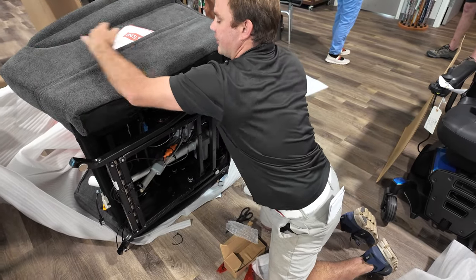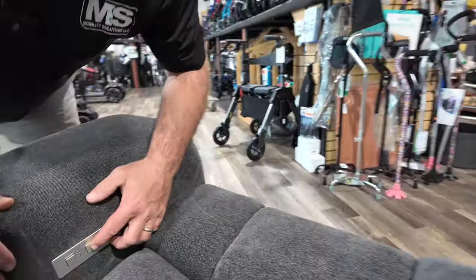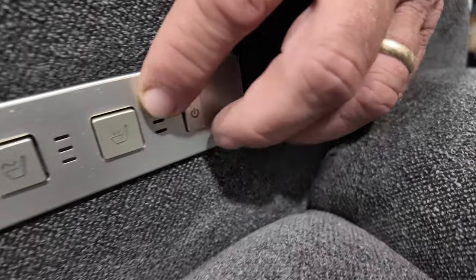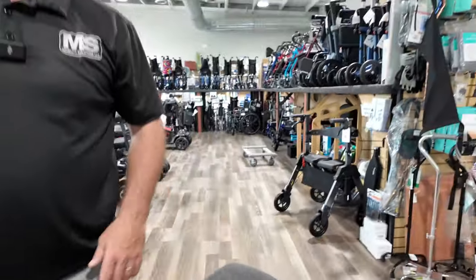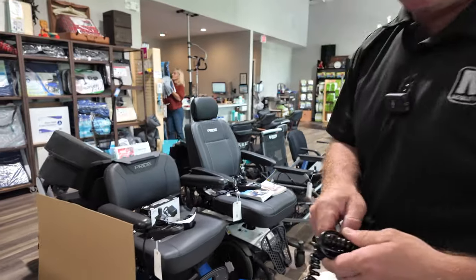Keep this manual — your serial numbers are in there. Right here you have your heat and massage controls, along with the power button. You have different levels of heat and different levels of massage. It's full-body heat: butt, lower back, shoulders.